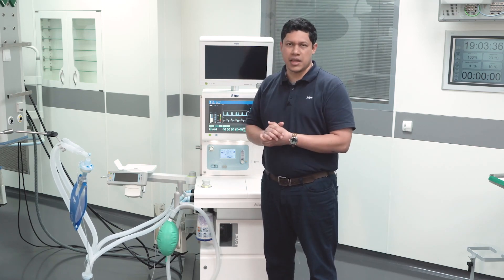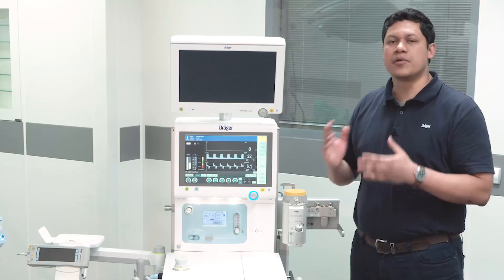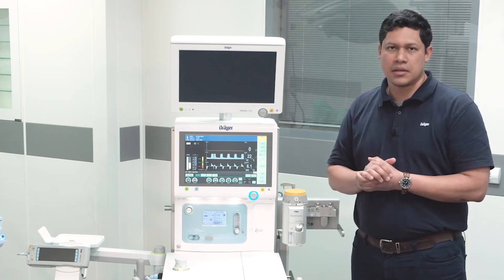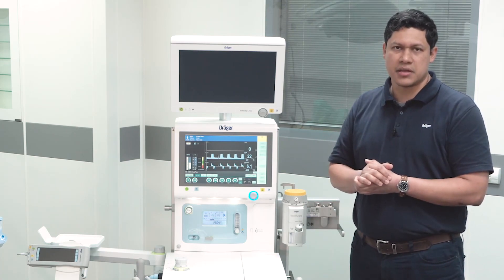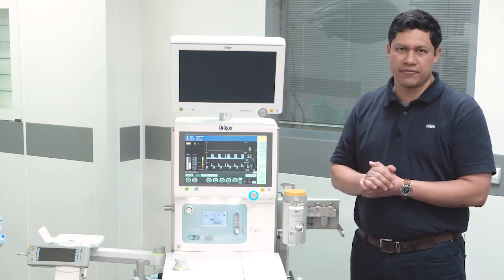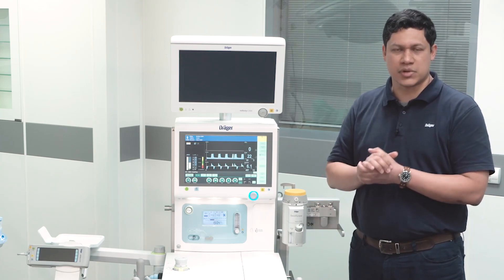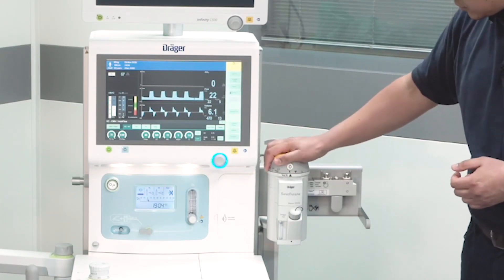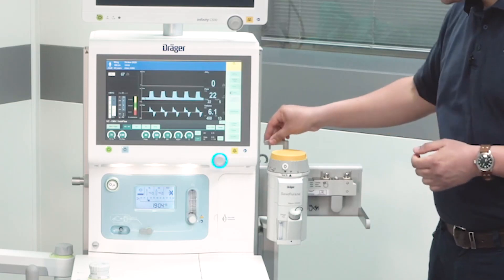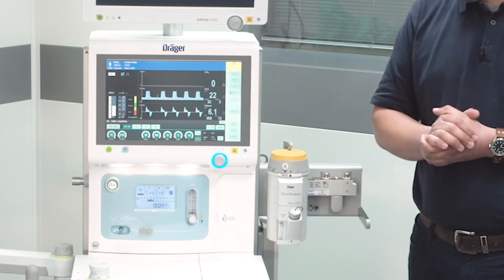Drug nebulization and aerosol therapy are not suitable for the anesthesia device. An important recommendation: remove all vaporizers from the anesthesia device, as even a minimum quantity of anesthetic agent might trigger malignant hyperthermia in the patient or clinical staff. To do so, press the button and turn the dial to the T (transport) position, then turn the lever and take the vaporizer out. Be aware that the vaporizer is heavy.